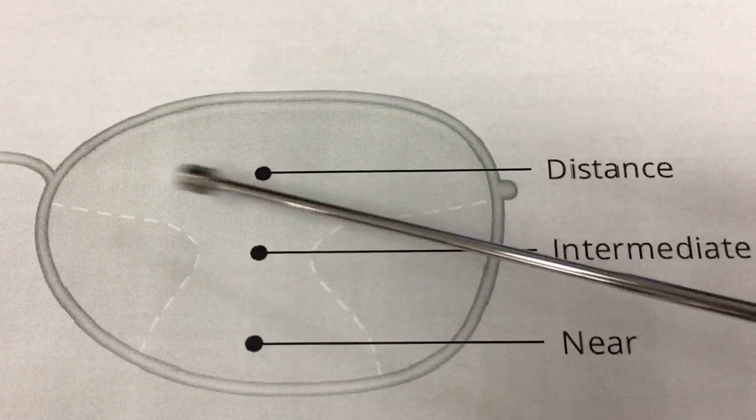This is an effect that won't stick around. Once you get past that brain training stage, you will not even notice it anymore. In a progressive lens, the way it's designed, there are a few zones where you're not going to get perfect clarity — let's call them blur zones. The progressive has come a long way since it was initially created, but there are still a few minor setbacks. In the spaces outside of the hourglass shape — in your periphery here and here — you're not going to get perfect clarity. With time, your brain will just ignore that blur and you won't even notice.